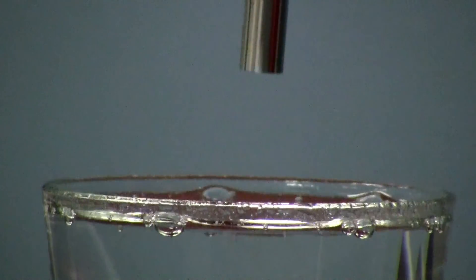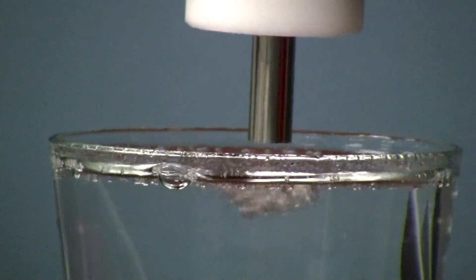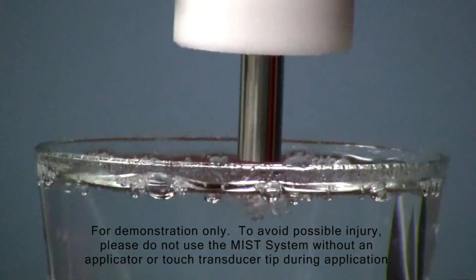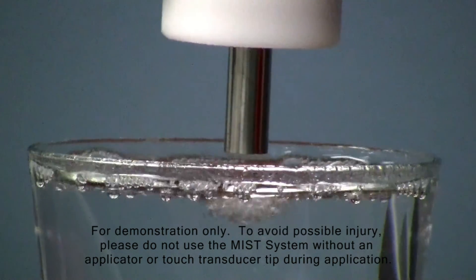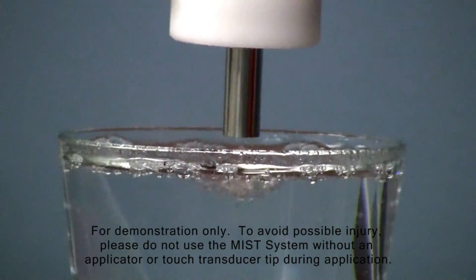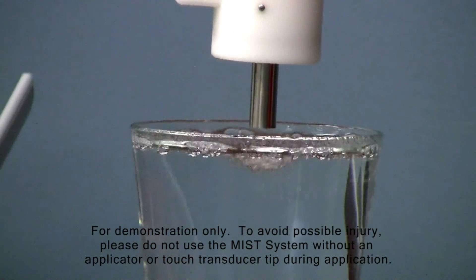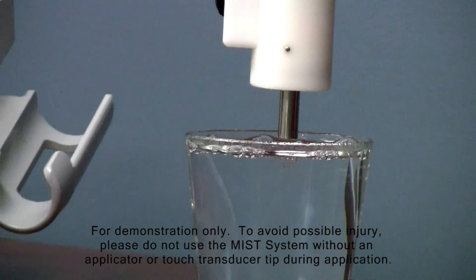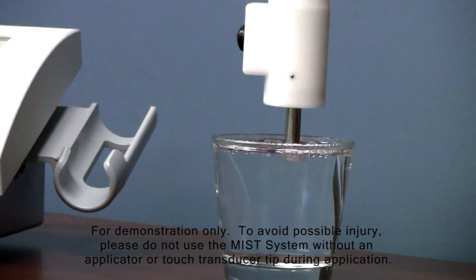The ultrasound waves that emanate from the transducer head can be seen here as they come in contact with this glass of water. While not visible, the low-frequency ultrasound waves provide mechanical stress on the cells to result in accelerated healing.